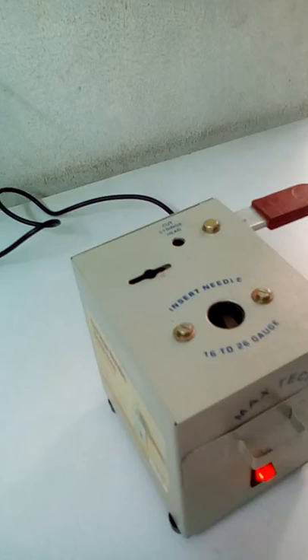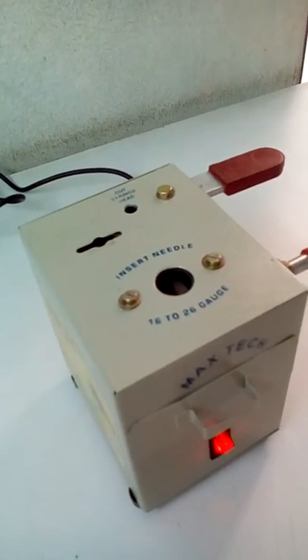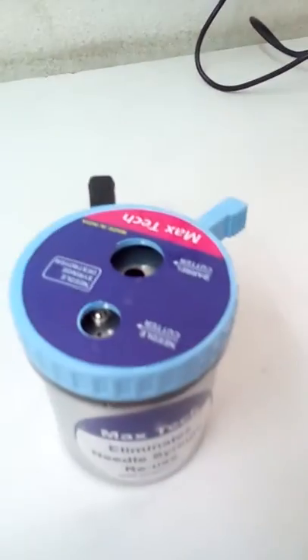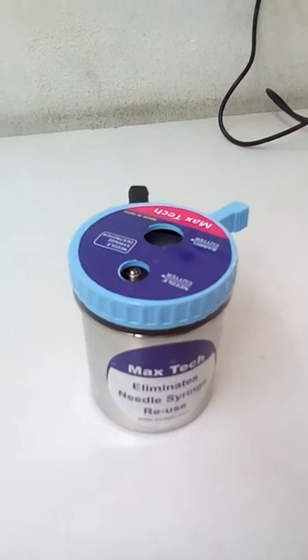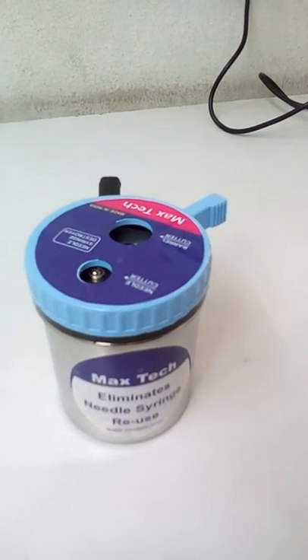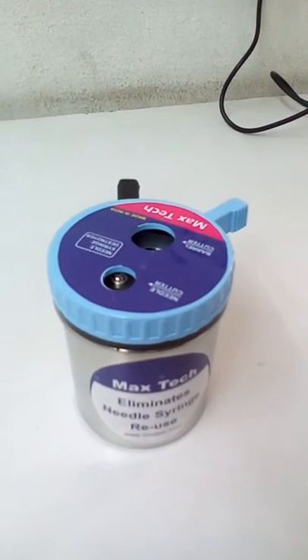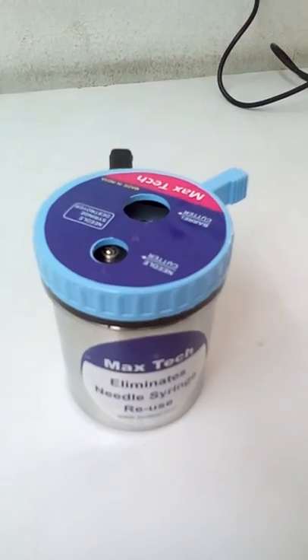So for burning the needles and cutting the syringe head, Max Tech E needle burner and destroyer, and manual Max Tech for field laboratories or places where there is power deficiency, eliminate the threat of needle and syringe reuse.